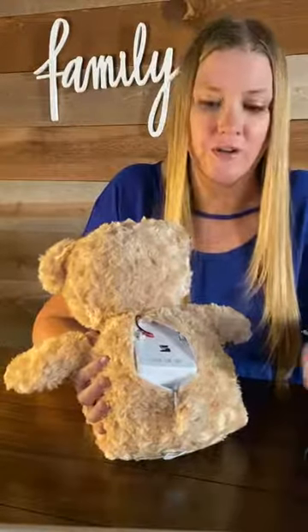Now let's take a look at the back of MediTeddy. When you undo the zipper, you'll see a box that looks like this. MediTeddy needs to be charged, so you'll want to take the charging cord and plug it into the port like this. MediTeddy needs to charge overnight and will let you know when it has enough power.